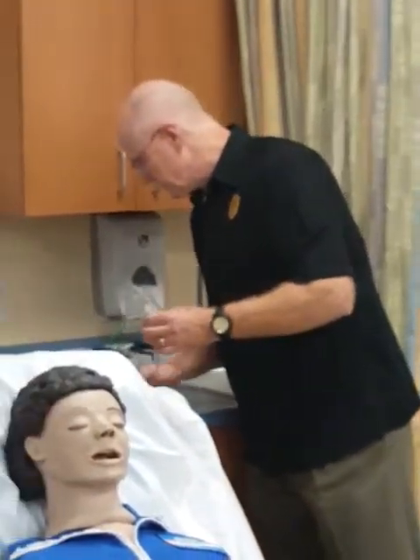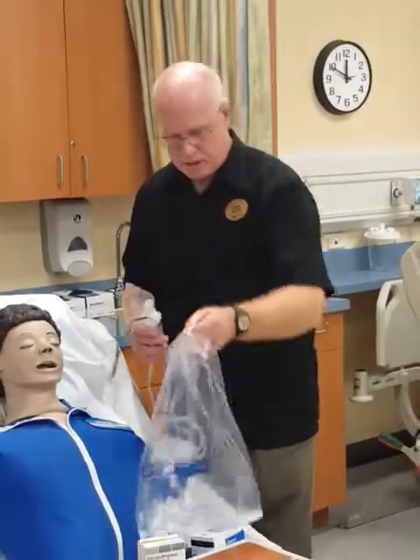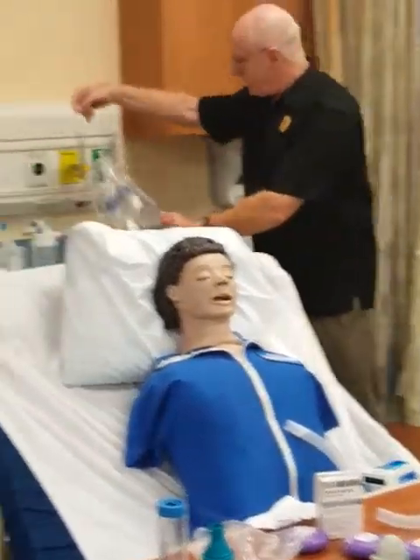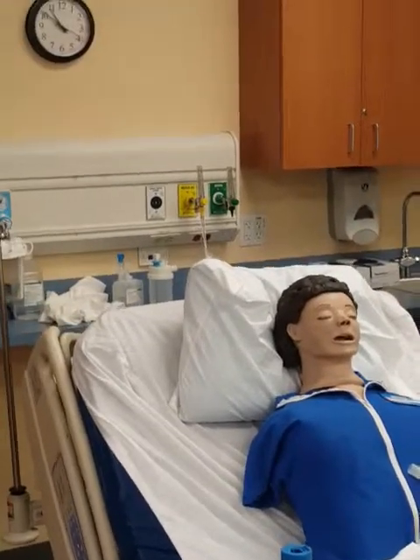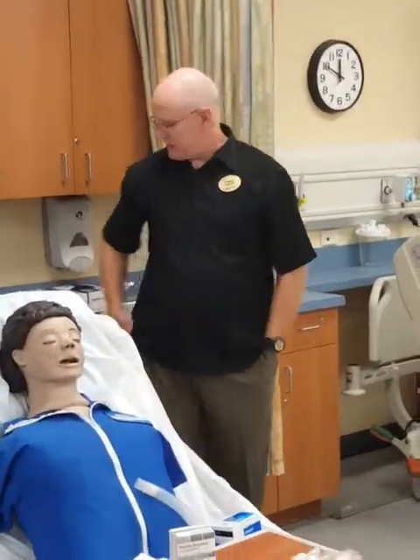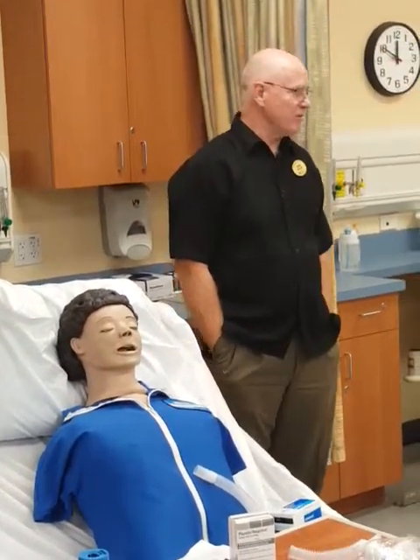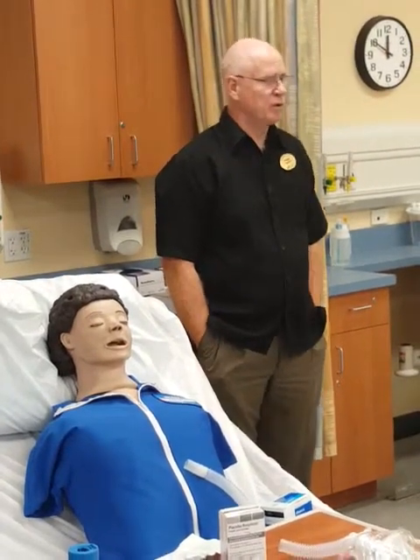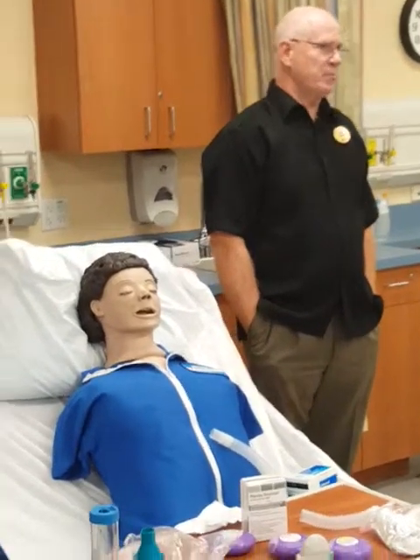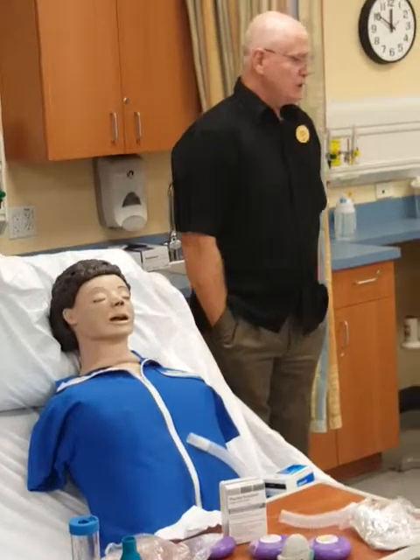Your textbook is very clear: you're supposed to rinse this out with sterile water and then put it to air dry. But I've been in the field a long time, and I have never seen a hospital with a policy that says rinse it out with sterile water, nor have I ever seen a therapist do it. It's in your textbooks and it's the recommended technique. But you never rinse anything that nebulizes medications with tap water — tap water still has pathogens in it.